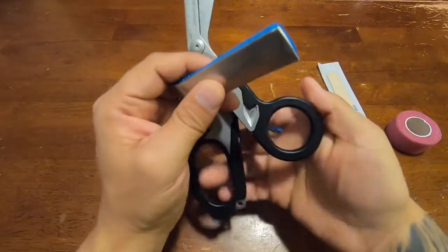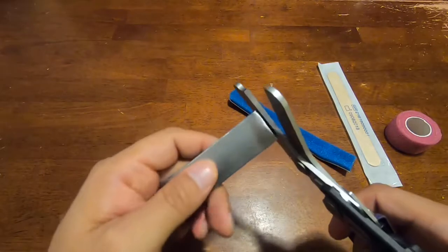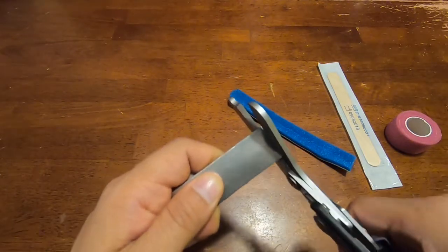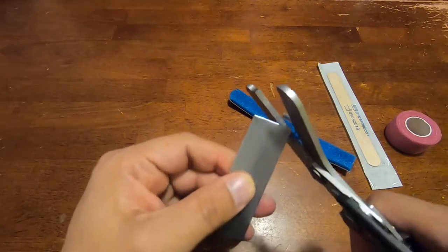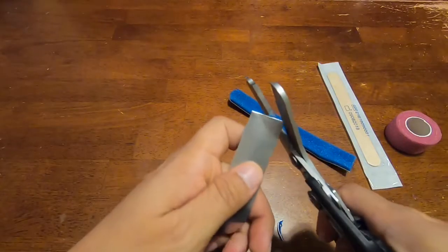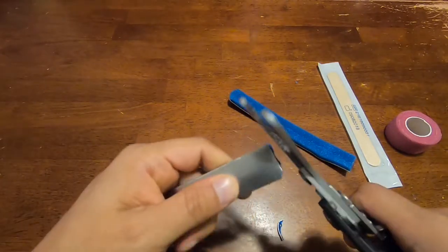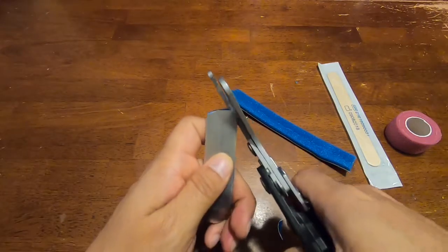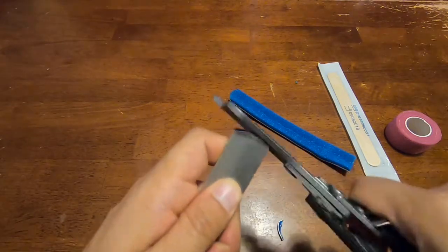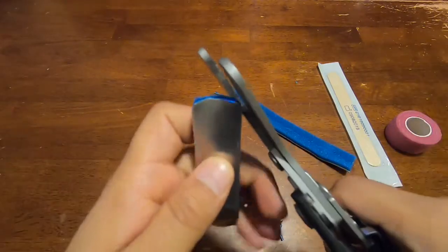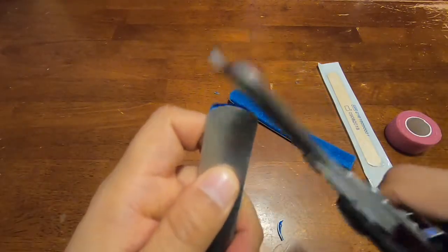So let's say I just need to adjust it further down to here. Basically all I'm going to do is take my scissors here, cut down to where you need to be. And then what you can do is cut around the edges, make the edges a little rounded so you see the edges are a little rounded, they're not as pointy.